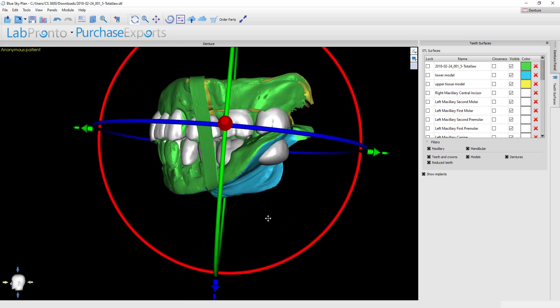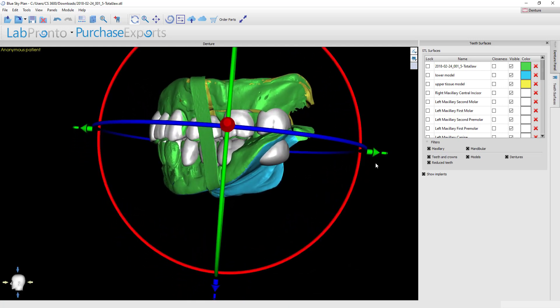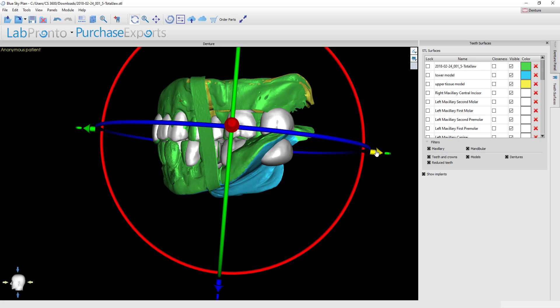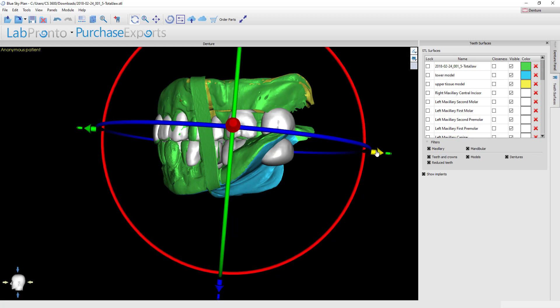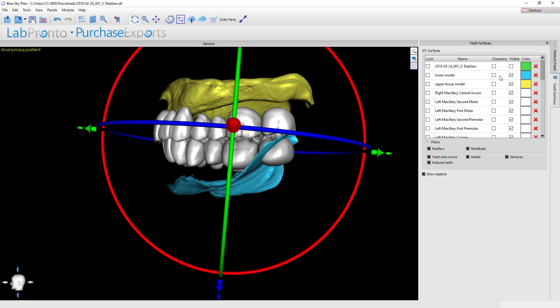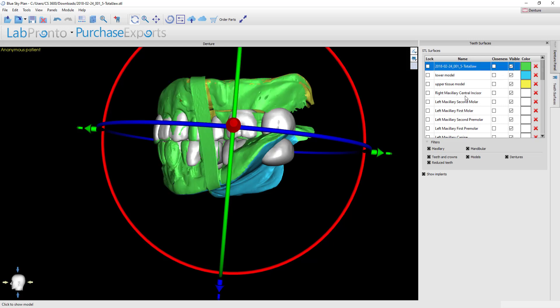I'm just taking this widget and the first step that I usually do is I will take this anterior or posterior until the facial surfaces align, assuming again that you have a reference denture or a wax rim where you've determined the anterior position of the teeth. If not, then usually my reference point is to just drop the facial of the teeth right underneath the depth of the vestibule and that usually puts you in the right position.